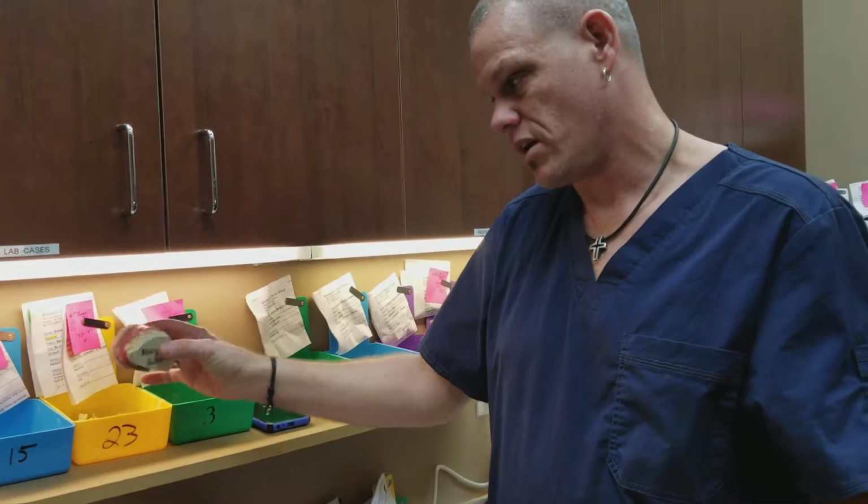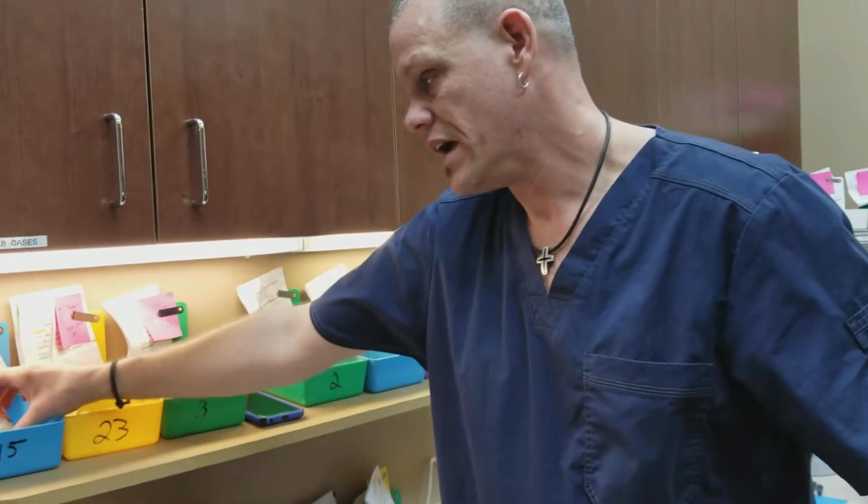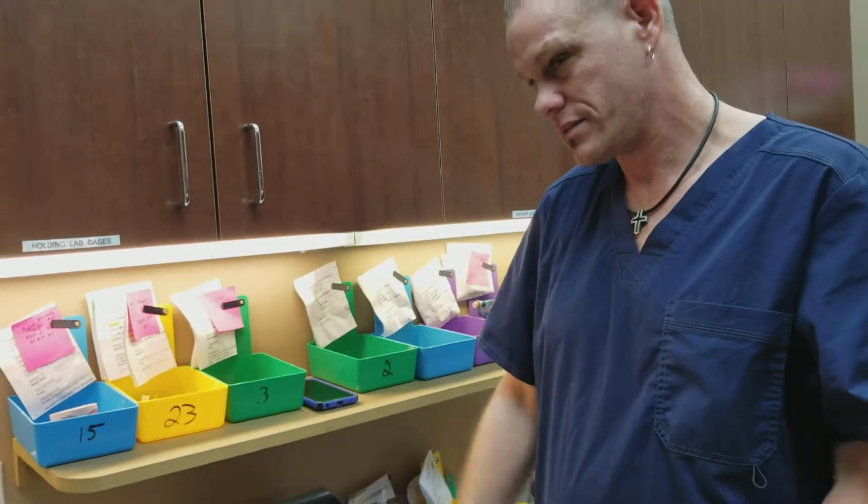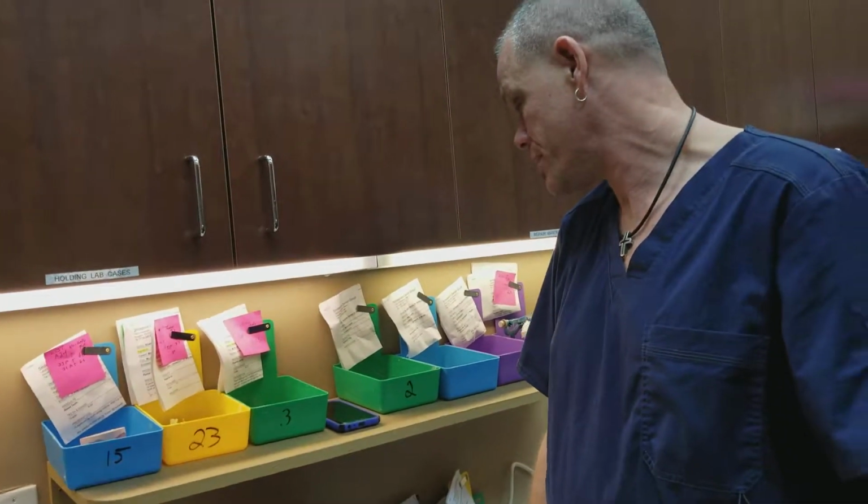Okay. And so I'll try to send both of the models, that way you can hand articulate, you can stick it back in the patient's mouth, see if it kind of correlates to what that is. So that's pretty much what I'm looking for.